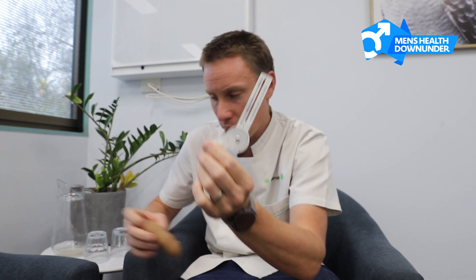So that one, as it was bent, was 50 degrees. It's a really unique piece of equipment — saves taking a dick pic, though you can still do that. But with this little bit of gear, you can very accurately talk to your urologist or doctor about the degree of curvature.